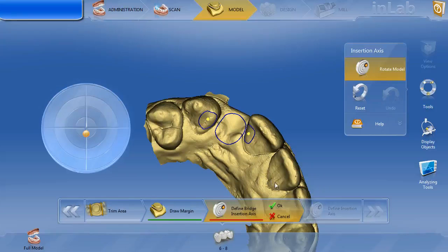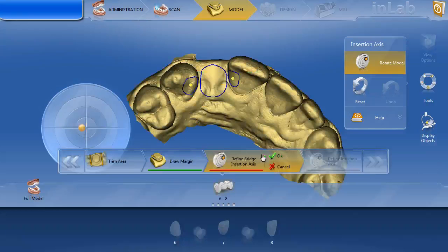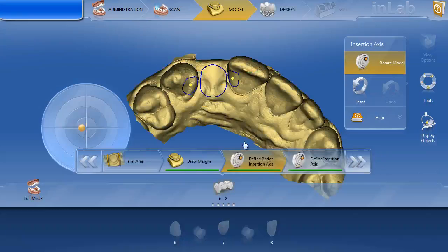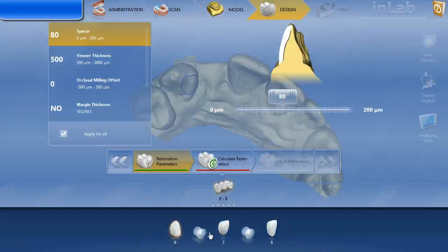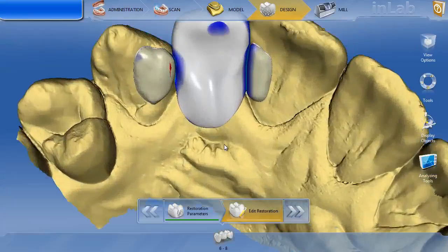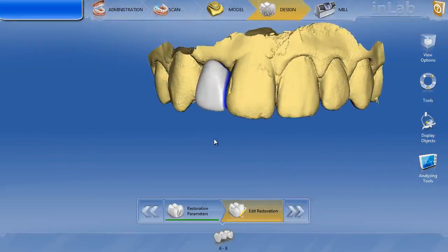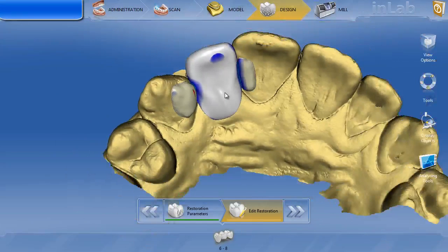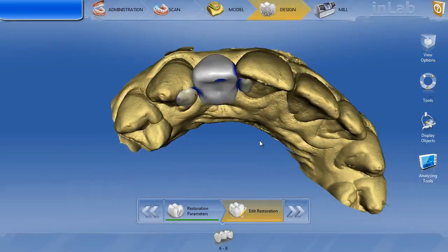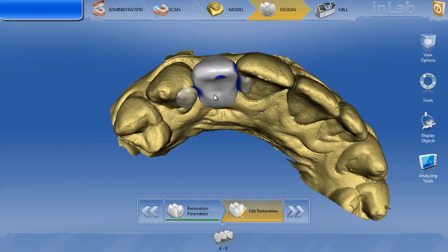The insertion axis is not too bad. I might switch it just a little bit to give me a little more access to all my margins. We'll go ahead and hit OK. You want to make sure you check your parameters for both the pontic and the two veneers, and then calculate the restoration. By doing that, you've got a much nicer proposal down here in the lingual. You can see the buccal looks reasonable — that's very easy to contour when you get it out of the mouth. Now the last thing we really have to deal with is the connectors. That looks good — the emergence and the embrasures on the buccal. The lingual is definitely a thin wing. Let's take our anatomical shape tool and shape out the whole entire lingual.